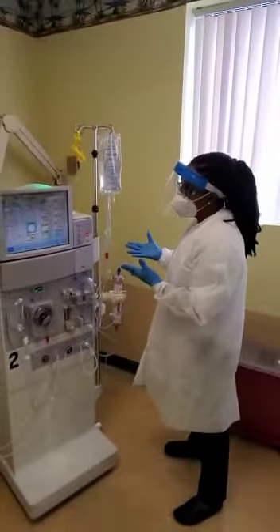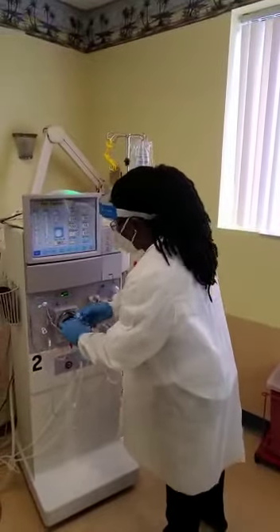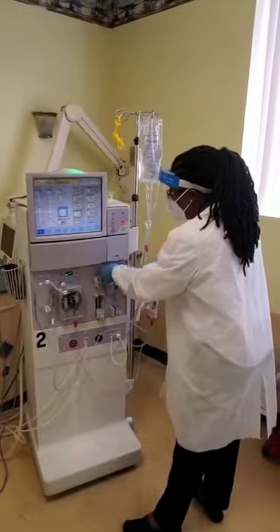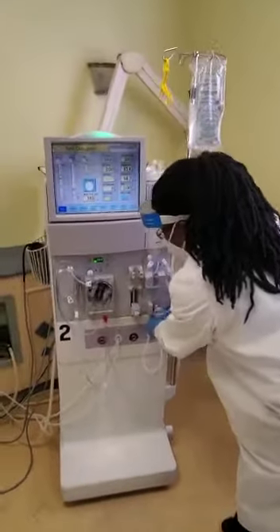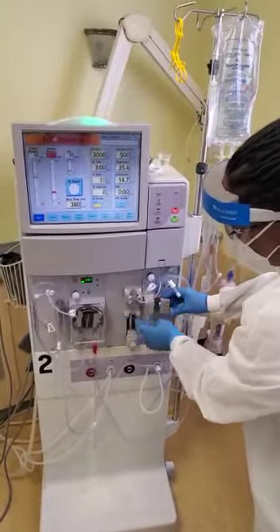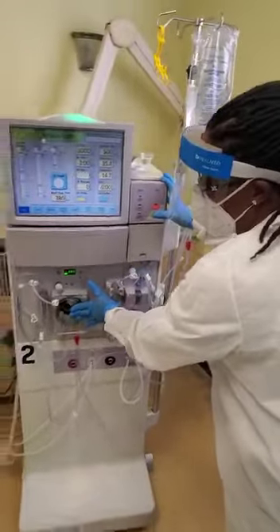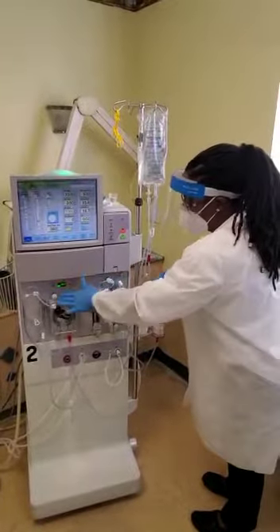I'm going to proceed to connect everything for demonstration purposes. Before I tested my machine, I took off the transducer filter protectors, so I have to put them back on. I have one arterial transducer filter protector and one venous transducer filter protector. I'm also going to arm the air detector so that when the machine detects air, these two sensors will clamp this lever, the machine will alarm, and the blood pump will stop.